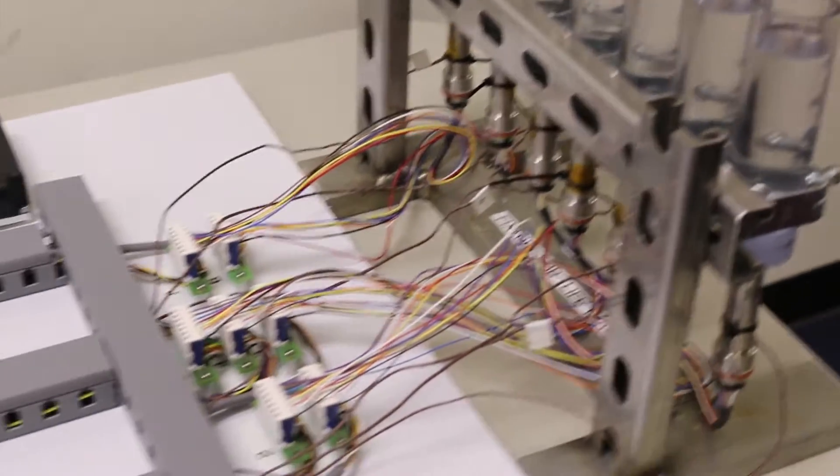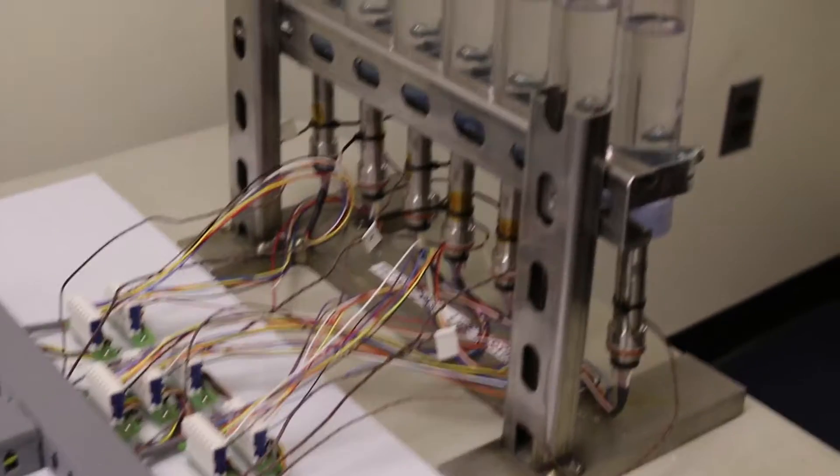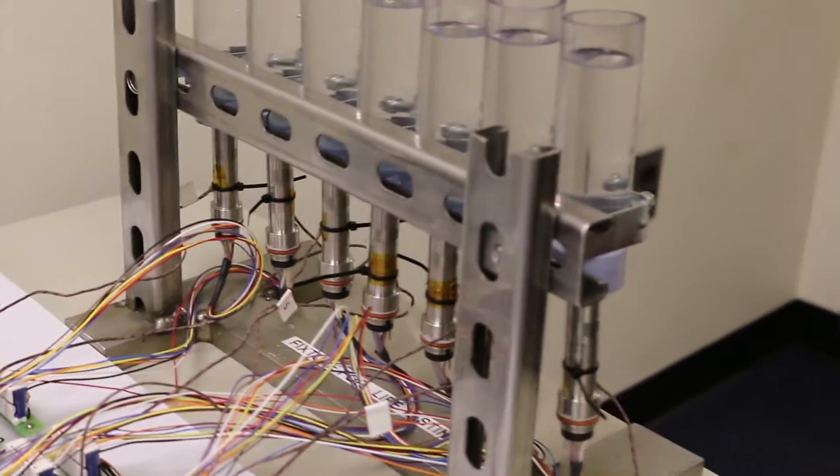Seven motors are mounted vertically with tubes of 0.9% saline solution, totally immersing the output shaft and tool driver.